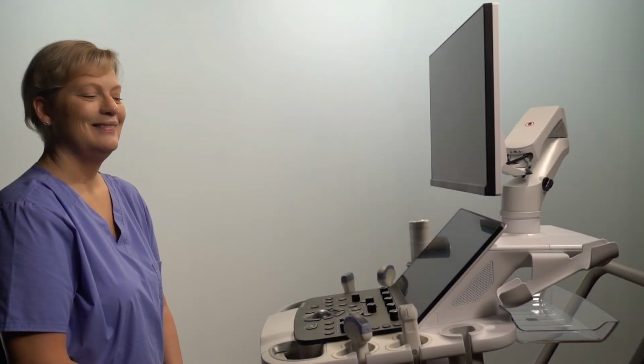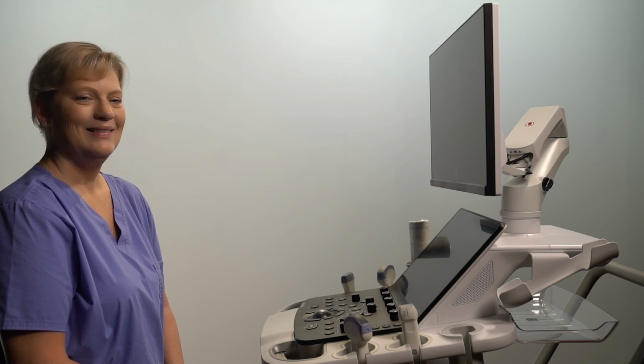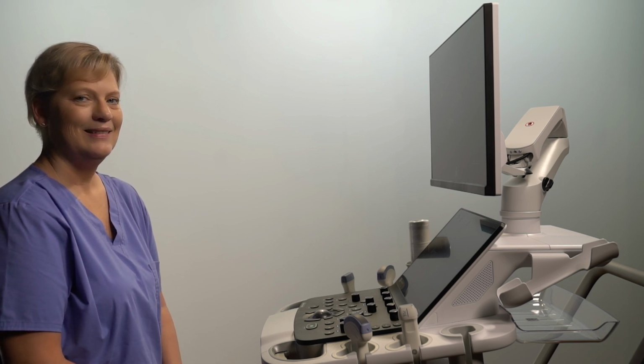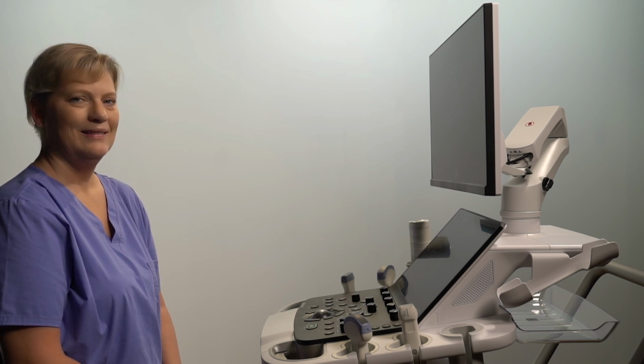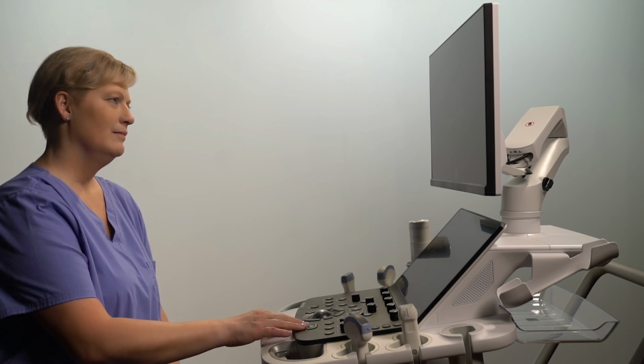This tutorial will walk through some basic controls to optimize B-mode image quality. We will also cover some features and when they could be helpful when using Versana Premiere. Please refer to the Versana Premiere Basic User Manual to check for any bioeffect possibilities when changing parameters.